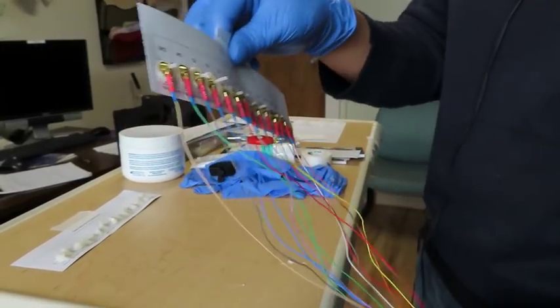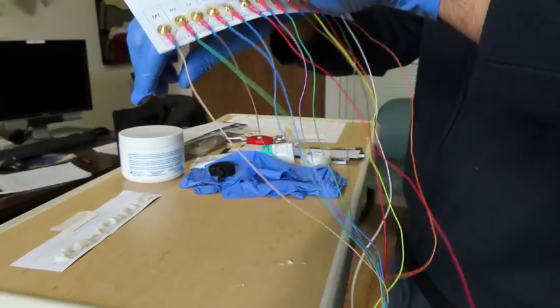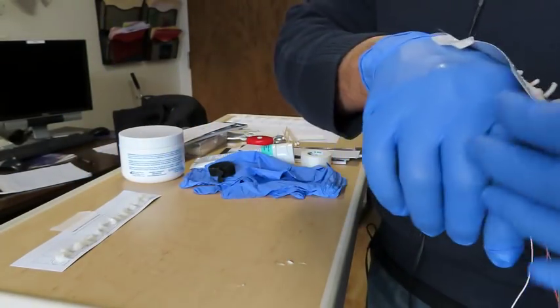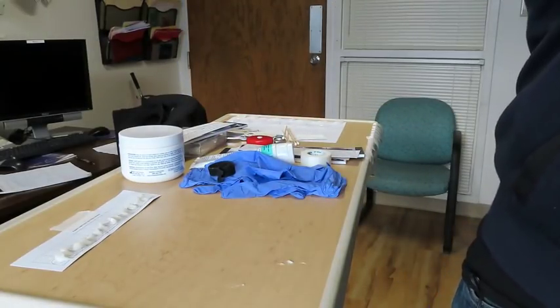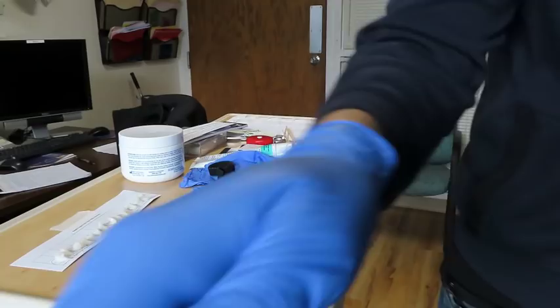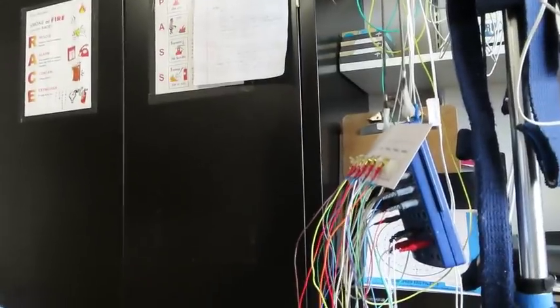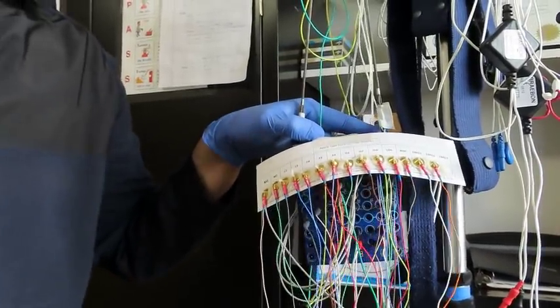So when the patient comes in, you can tape this to their back while you're doing the setup. You can tape it to your IV pole before they come in. You can tape it to your head box. Right now I'll tape it to the head box, and then I'll turn the camera to show you. Okay, so this goes here. And again, that's that part right there.